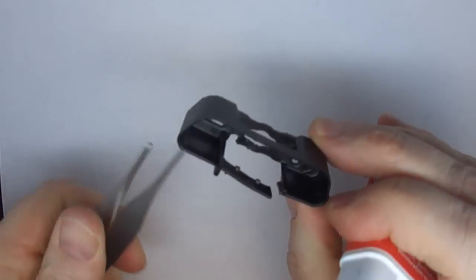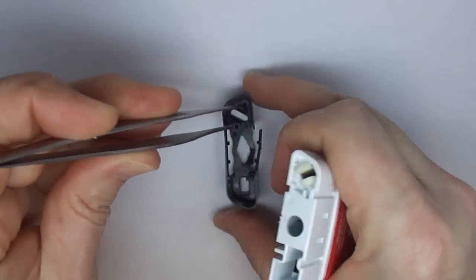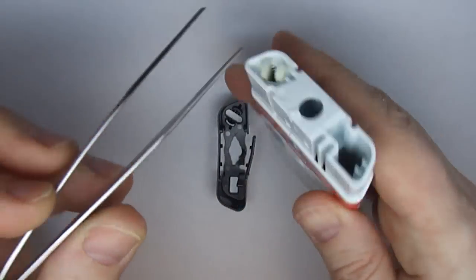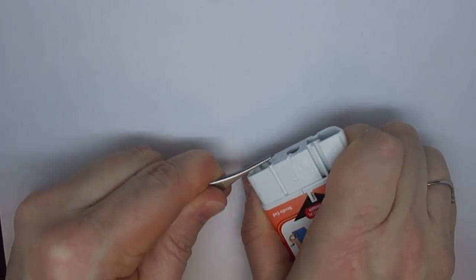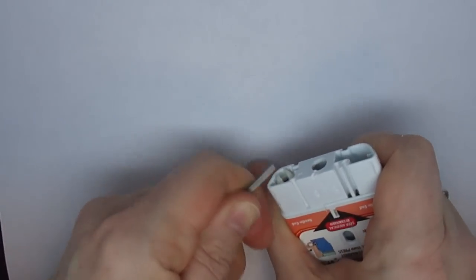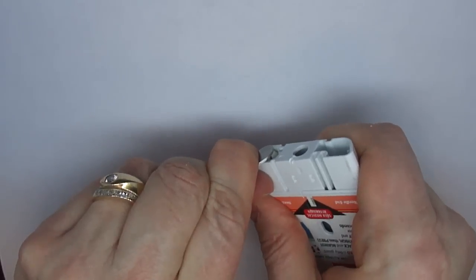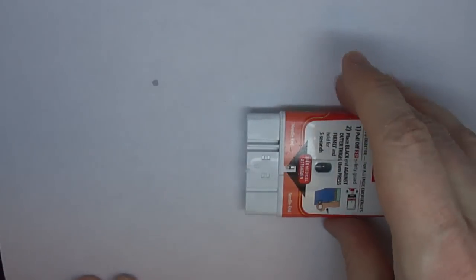Pull this apart. So these two pieces here press against the bottom piece of this plastic here and we're going to do that and activate this device. It turns out that's quite difficult to do. There it goes. I'm glad I didn't stick myself with that. It shows you not a good thing to be trying at home.